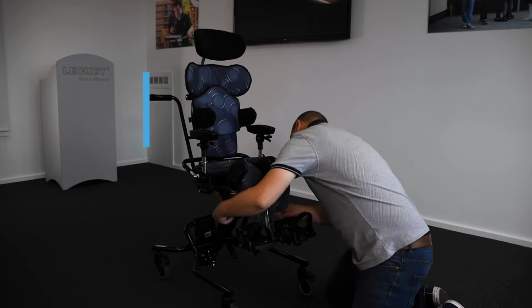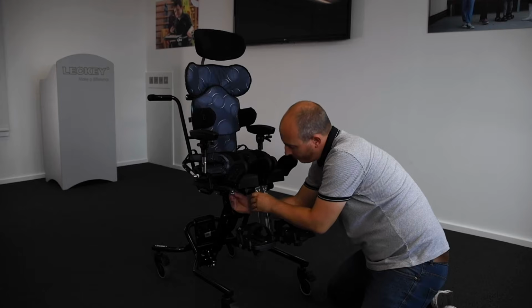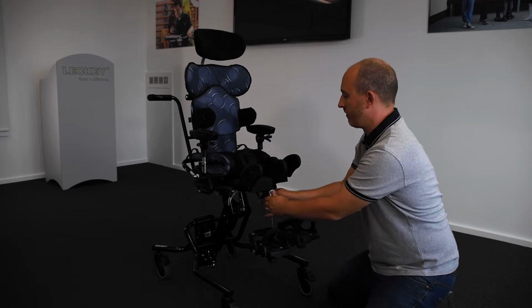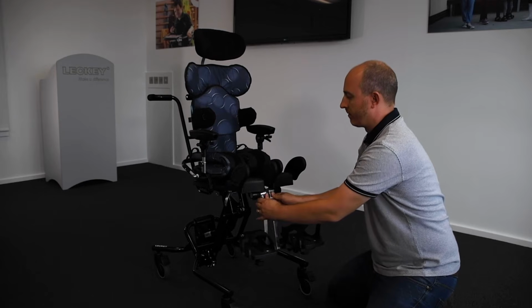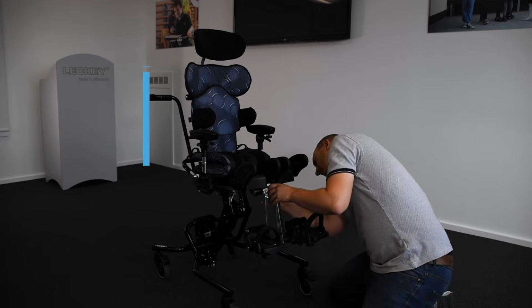Upper leg guide lateral supports. To adjust the leg guides, loosen the locking levers under the seat and slide the leg support to the required position. Keep the supports pointing straight forward at this time, unless windswept or adduction, abduction must be accommodated, in which case set the angle accordingly. Retighten the bolt. To increase the angle further, remove the bolt and move the leg angle to a wider setting.